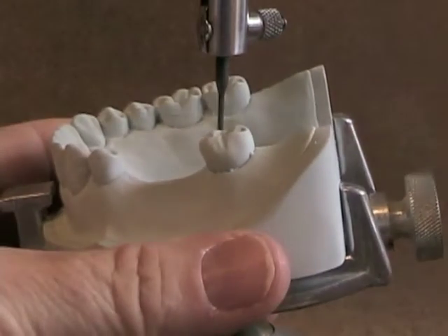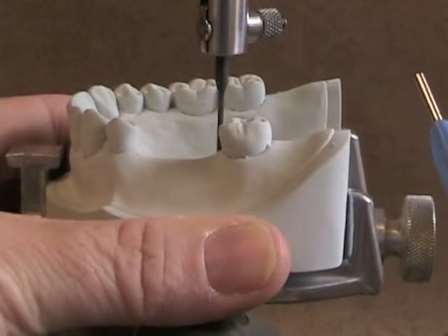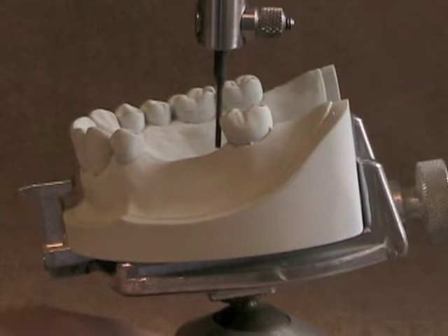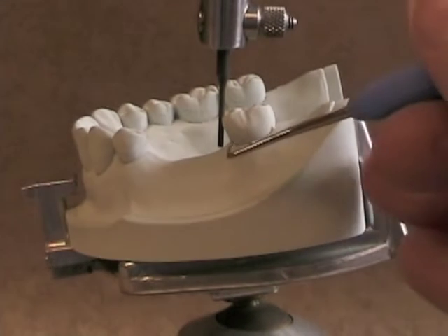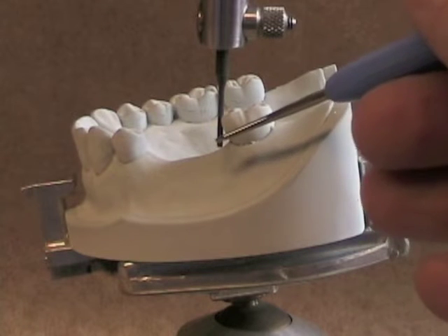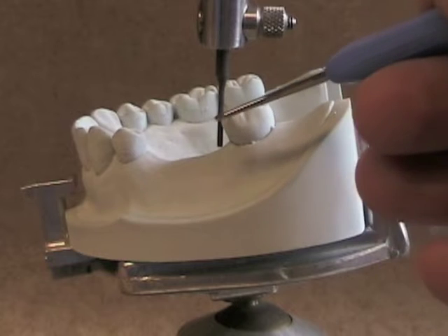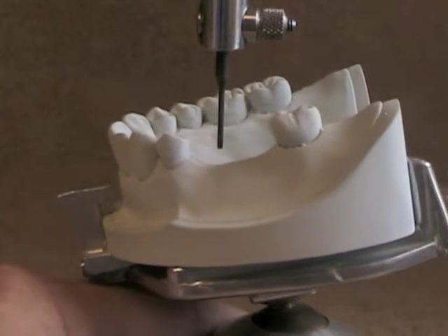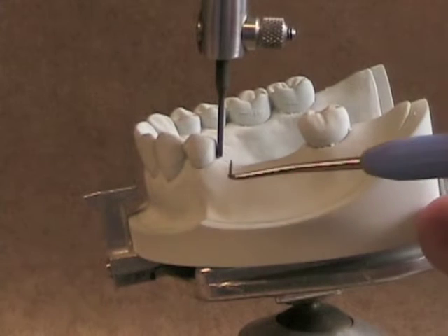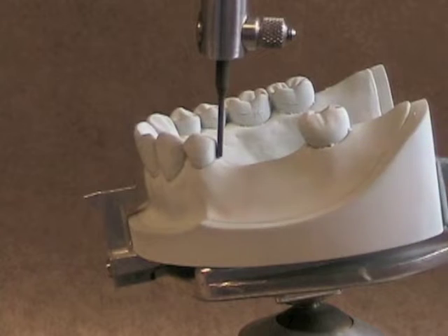The next thing you want to do is start with the tilt of your cast relatively horizontal. If it's not horizontal you're going to find that you have some discrepancies. We'd like to equalize the undercuts we see between teeth. When we look at the mesial-distal aspects, we see we've got a large undercut over here. The height of contour is right at the marginal ridge, but if we look at the tooth in front of the edentulous space, the height of contour is right down at the gingival margin. That's not even.